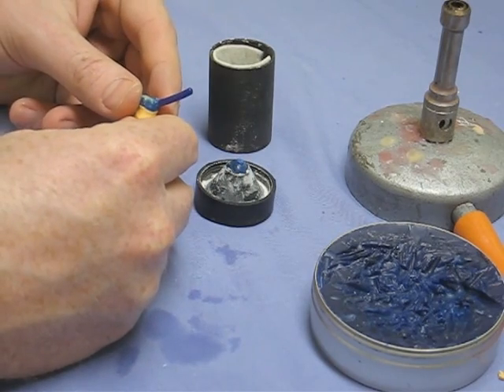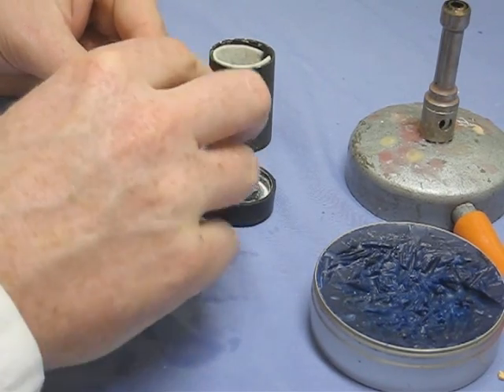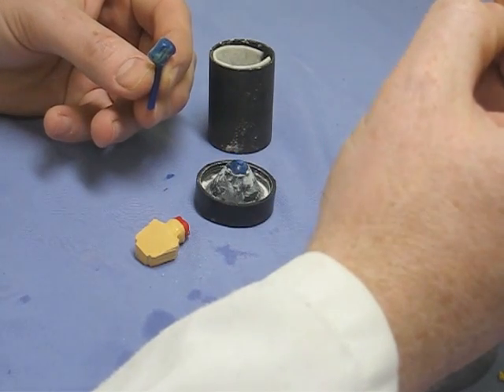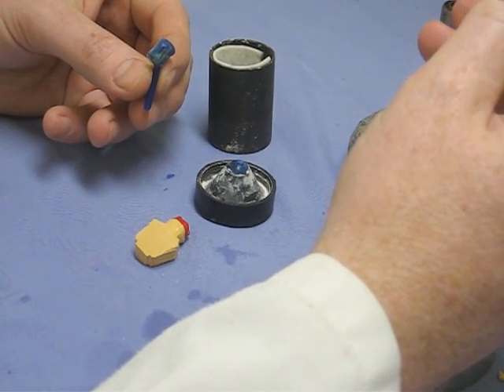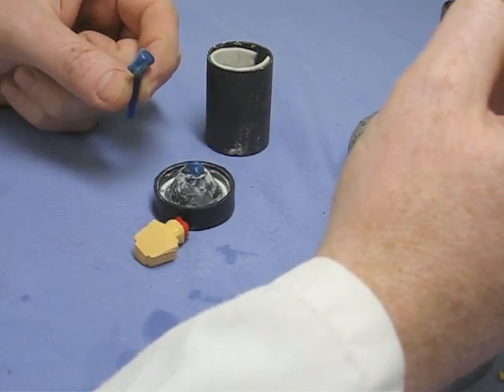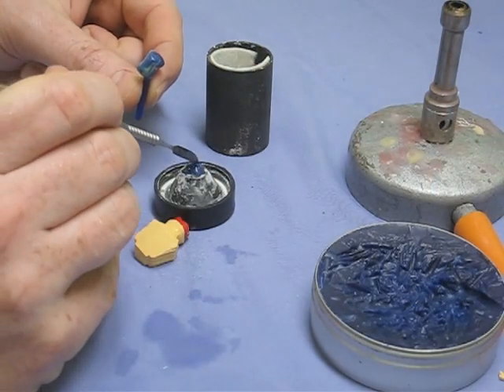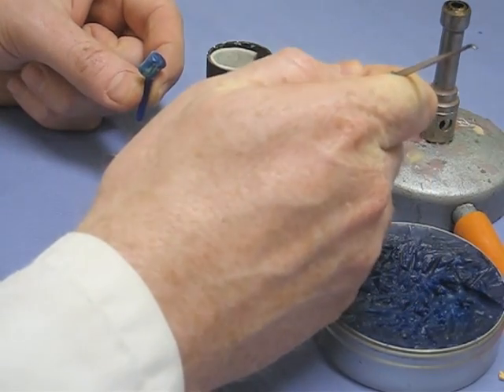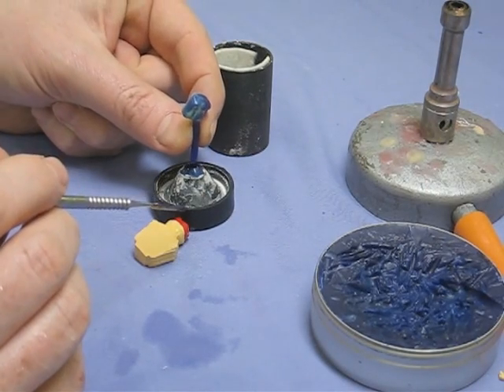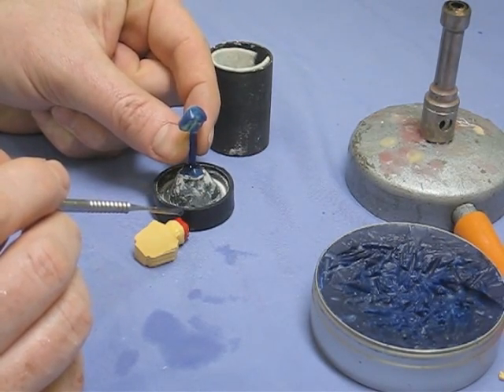We want this expansion to occur because as the molten metal cools and solidifies of course it will shrink. So the pattern's made, invested, the whole lot's expanded by us heating it up and then the metal's shot in and then the whole lot shrinks down to the original size together. So we have to get the match between the two materials correct.